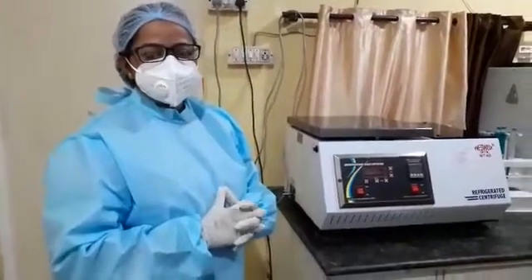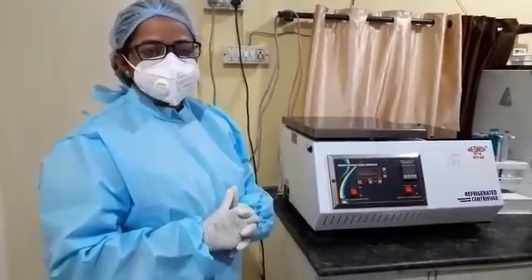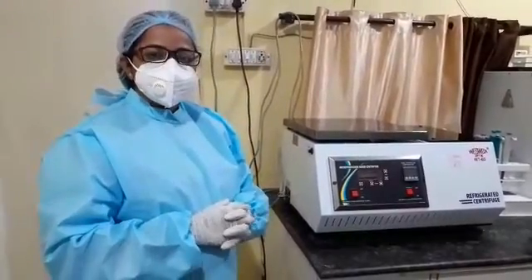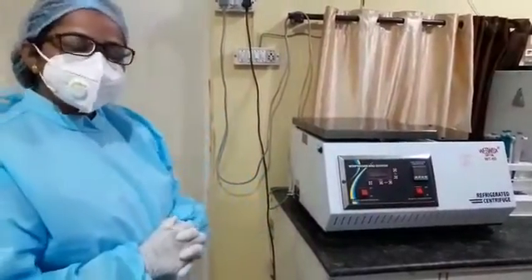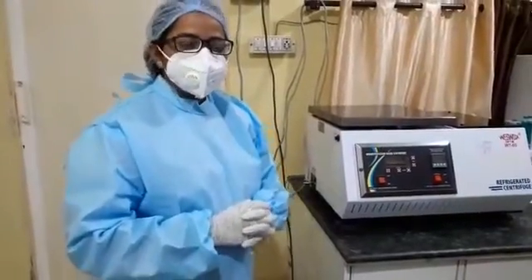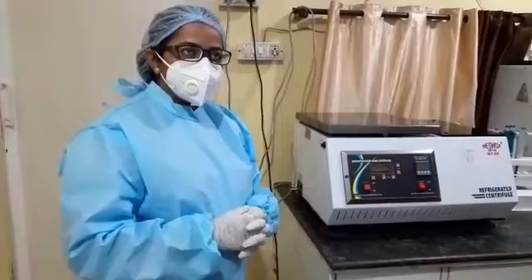For sensorineural hearing loss, we use PRP and inject it inside the ear, and we are getting good results. Initially, we were using a centrifuge which is not a cold centrifuge, so we used to get a problem.